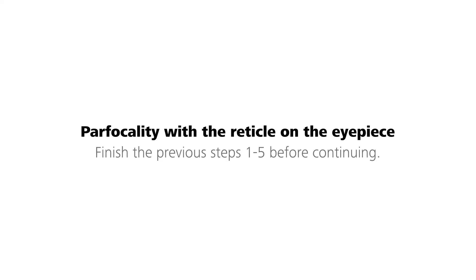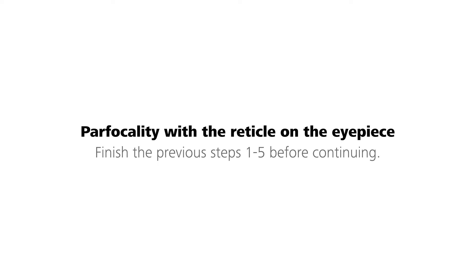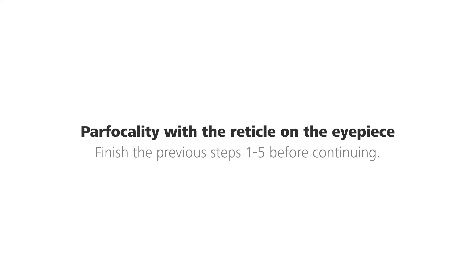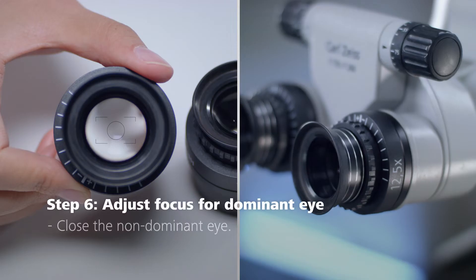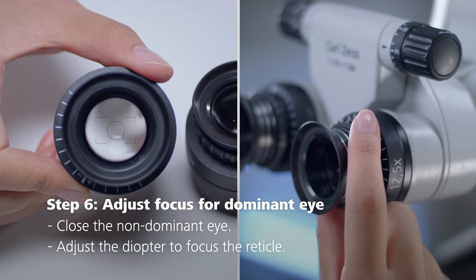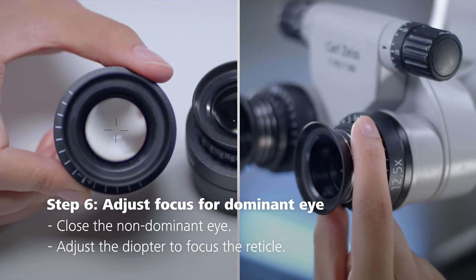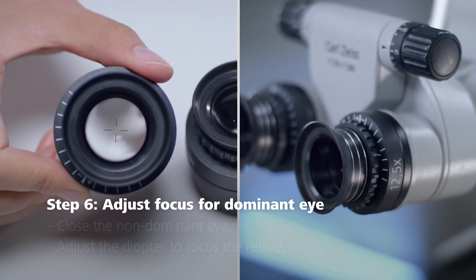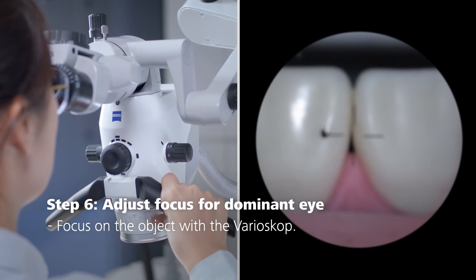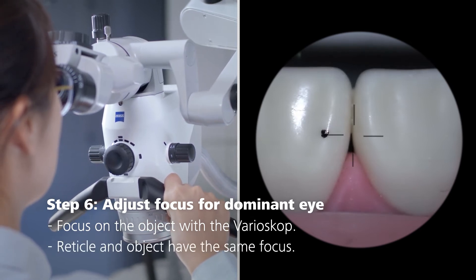If you are using an eyepiece with a reticle, first follow the previous steps 1 to 5, then continue with the following steps. The eyepiece with the reticle must be assigned to your dominant eye. Slowly turn the diopter ring of that eyepiece clockwise from plus 5 until the reticle is in focus. Then focus the dental microscope on the object with the varioscope so that the reticle and the object are in focus at the same time.